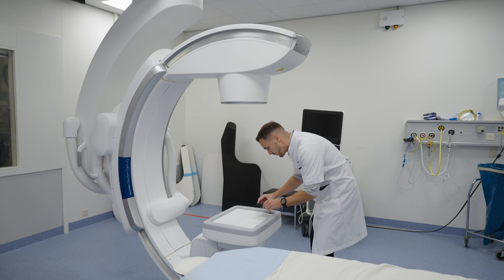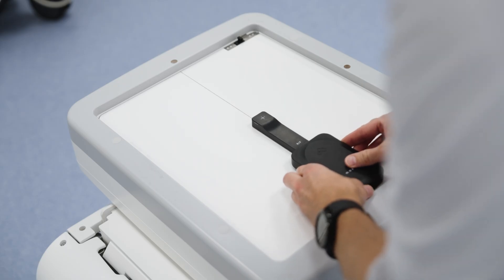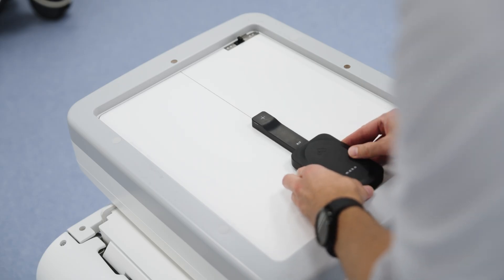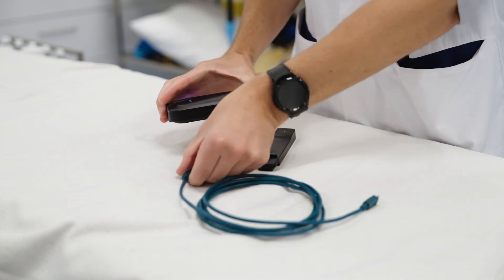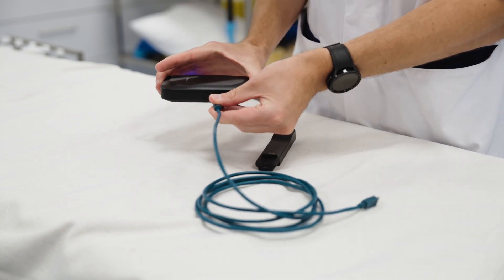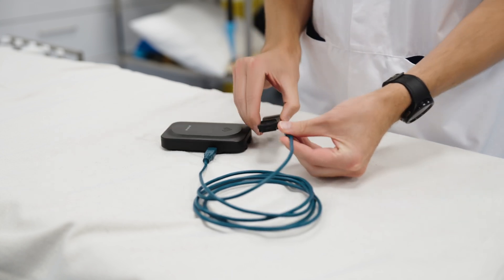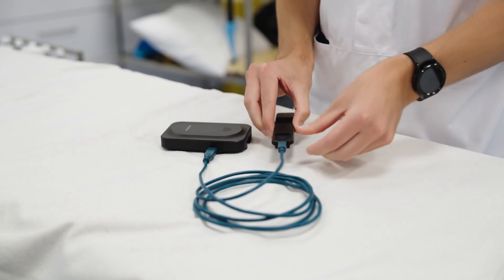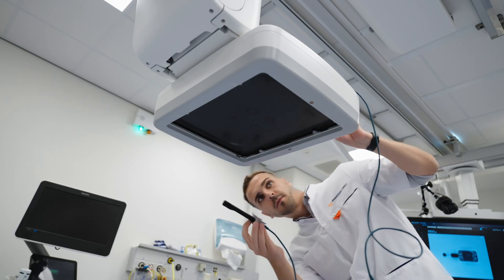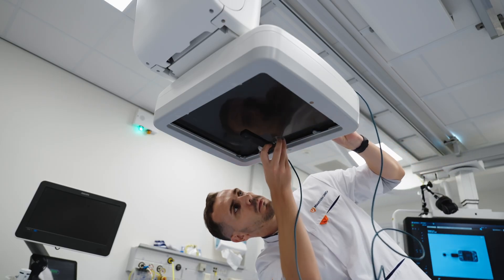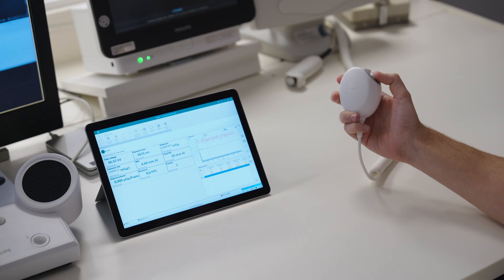Place the Mako RF probe into the correct position for x-ray measurement. The crosshair denotes the detector area. The Mako RF probe can also be connected to the base unit via USB cable. The probe is lightweight and has a small radiological footprint, allowing measurement in AEC test applications or when the probe needs to be attached to the detector surface.